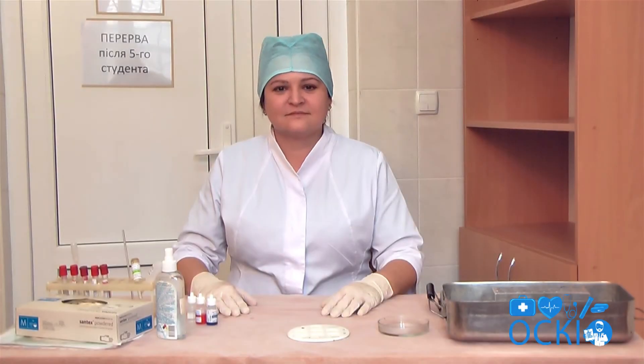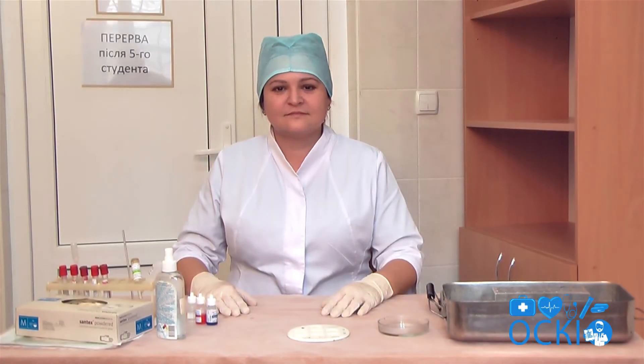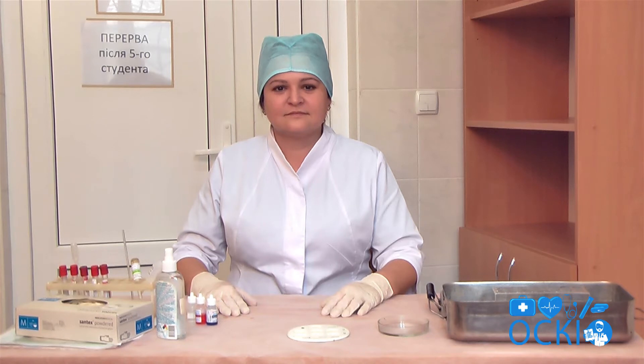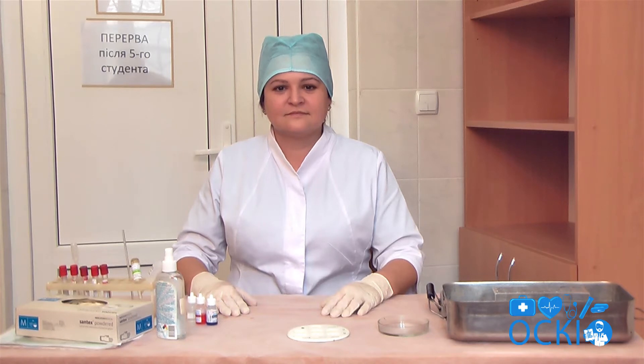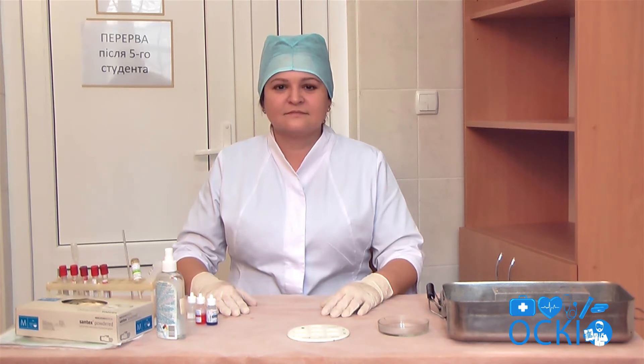Algorithm for students. Determination of blood group according to the ABO system by the coliclone method.